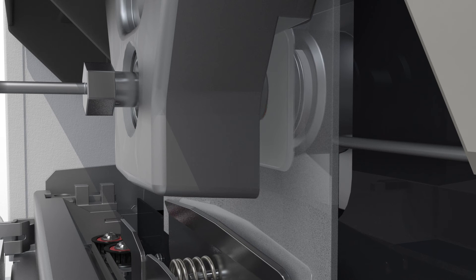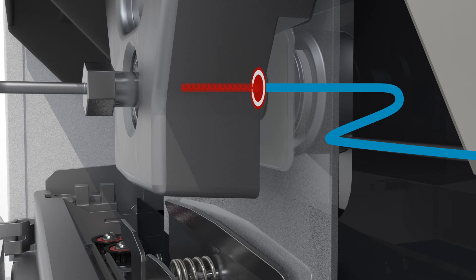The clamp closes and creates a leak-tight seal centered around or within the spot. Solvent is now pumped through the clamp.